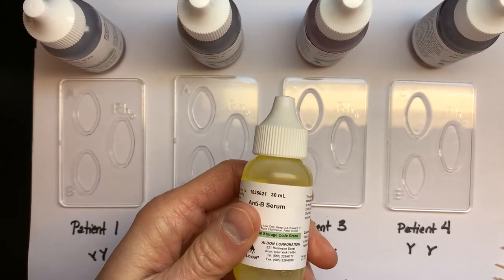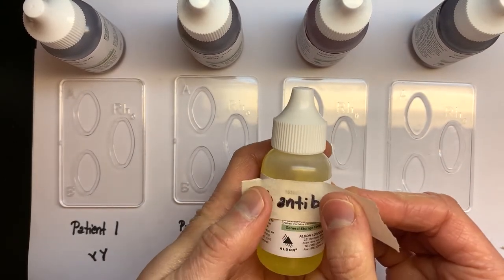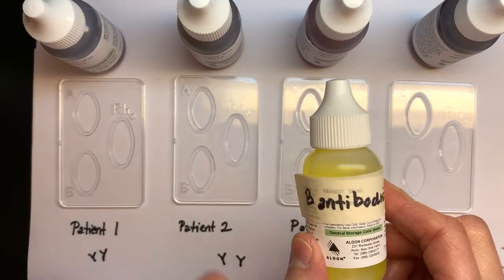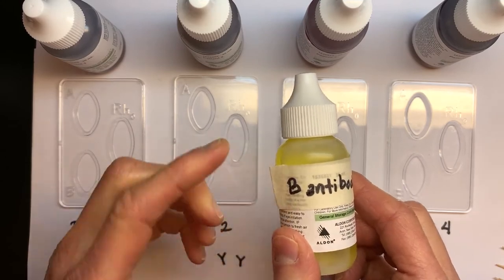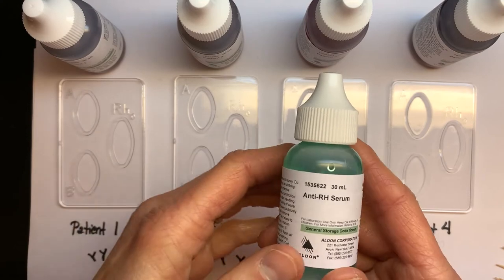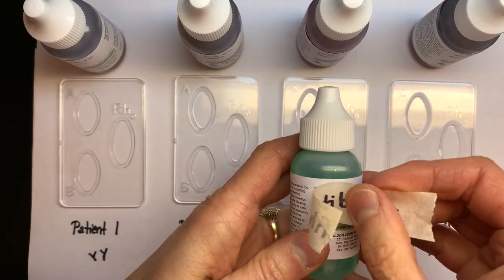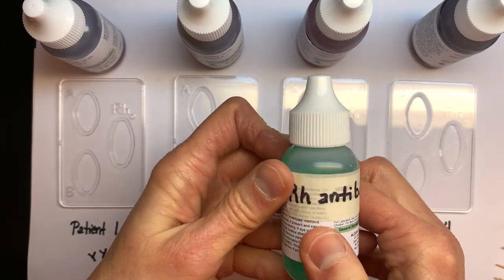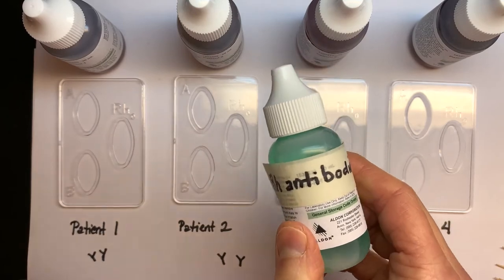A antibodies attack red blood cells that have A antigens. Here's anti-B serum, and again we're going to relabel this as 'B antibodies' — you can call these anti-B or just B antibodies. Then we've got anti-RH serum, and I'm going to relabel that as 'RH antibodies.'